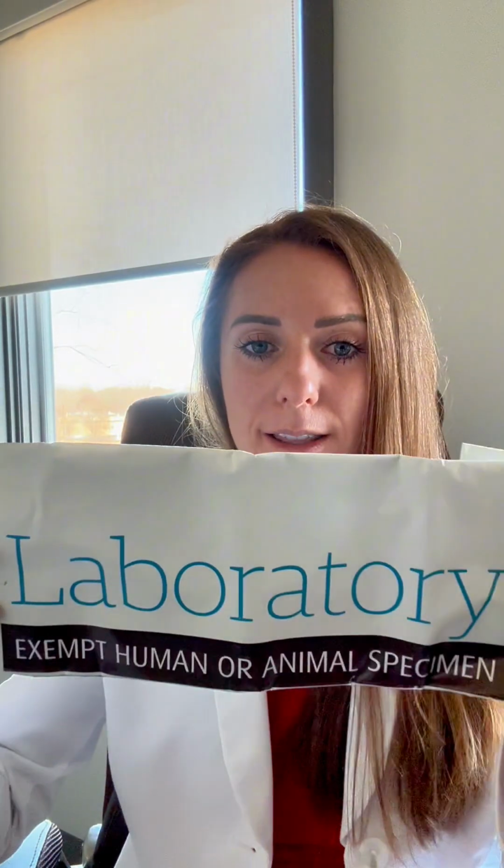Inside, there's also going to be a bag. So you're going to send this to the UPS store. Any UPS drop-off is typically fine as well. It's going to have this biohazard bag, so once you collect the stool, you're going to place all 3 of them in this bag before you send it out.